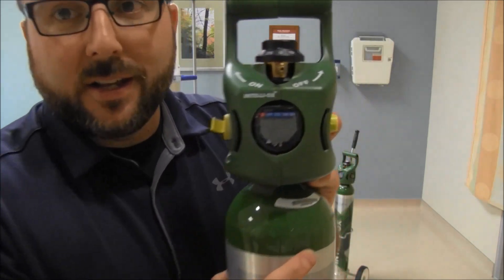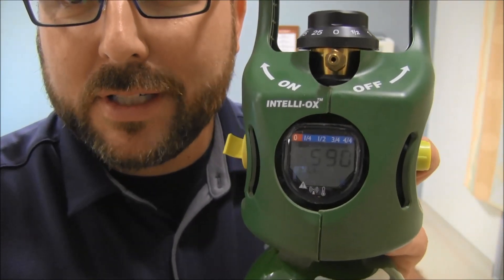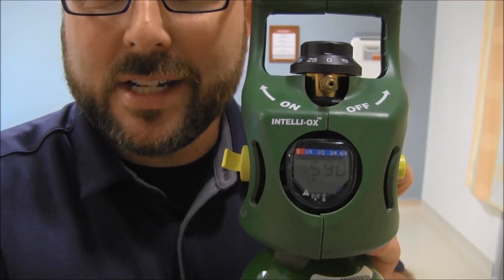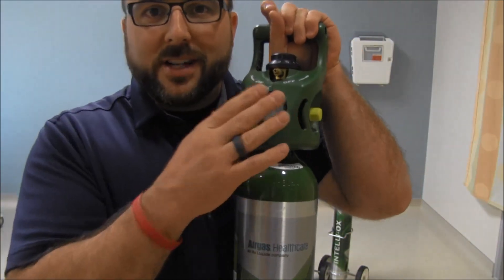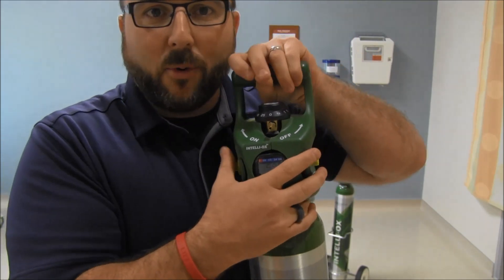Look at this — I don't see PSI on here. I see a number that makes a lot more sense: it reads 590 liters. There are 590 liters inside this tank. No more pressure per square inch — that makes a lot more sense to somebody who doesn't look at oxygen tanks every single day.